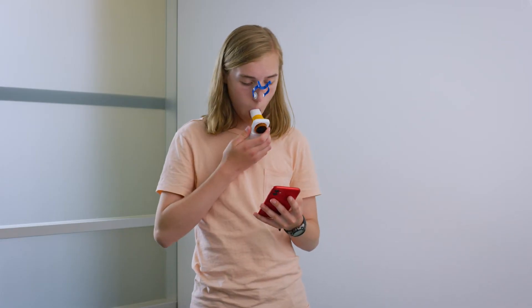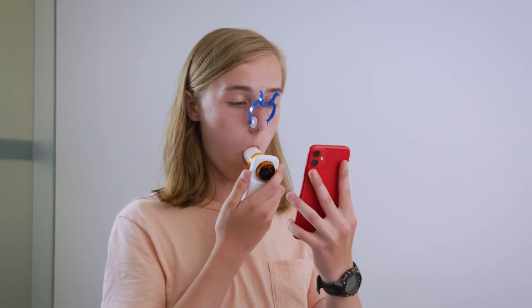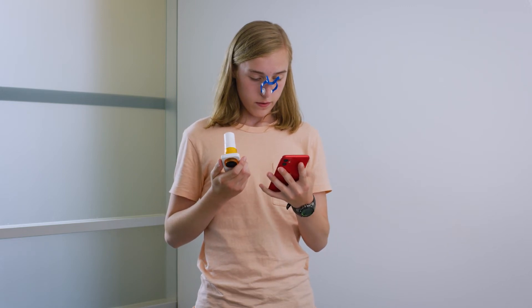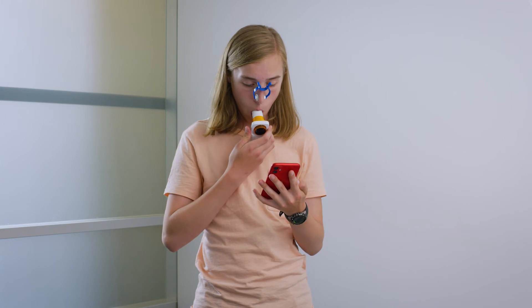Let me go over a couple of helpful tips. Remember, the beginning of the test is different from lung function testing in the clinic. In clinic, you put your mouth on the mouthpiece and take some normal breaths until the respiratory technician tells you to take a deep breath in. With the home spirometer, once you put your mouth on the mouthpiece, you take a deep breath in right away without the regular breaths first. You may find that the device thinks you're starting a test if it senses air movement before you take that big deep breath in. So be sure to keep the mouthpiece a little bit away from your mouth, but close to your face, until you're ready to put your mouth on it.